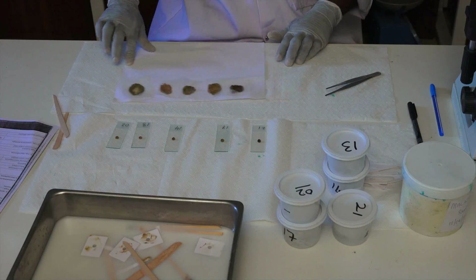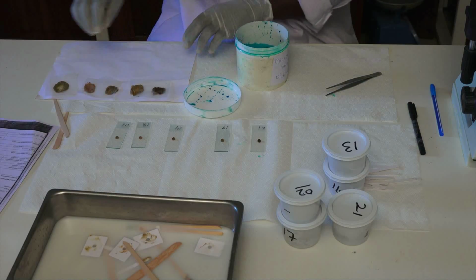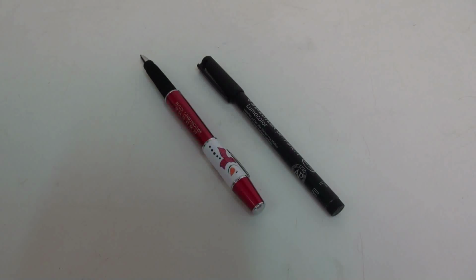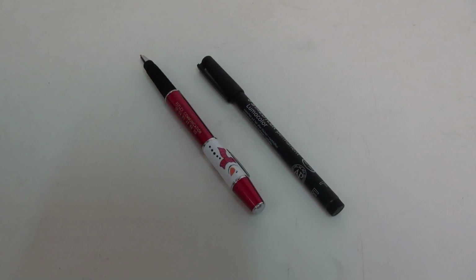The materials and reagents needed to perform the Kato Katz method are a form to register results of a parasitological investigation, a pen to complete the form, and a marker pen to record an identification number on microscope slides.